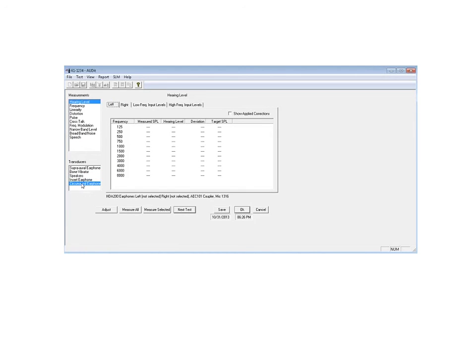They're a little more specialized. These are also sometimes referred to as the high-frequency earphones, as they will go up and accurately produce the 12,000 hertz and some of the higher frequencies that they may be interested in testing.